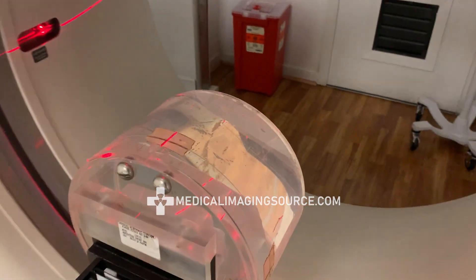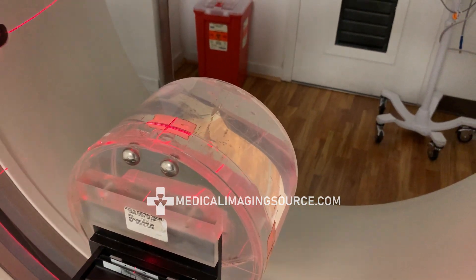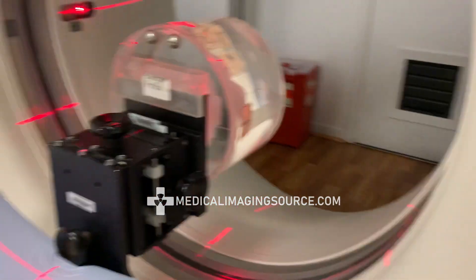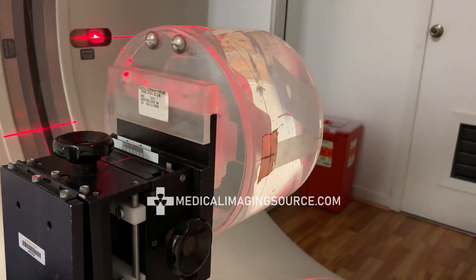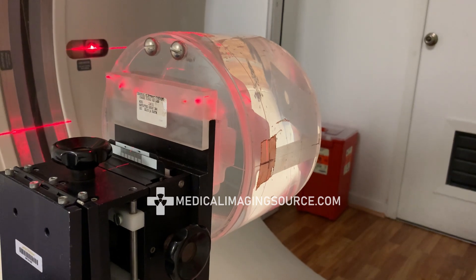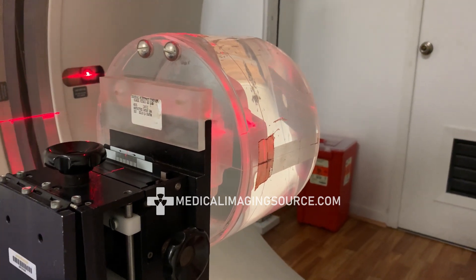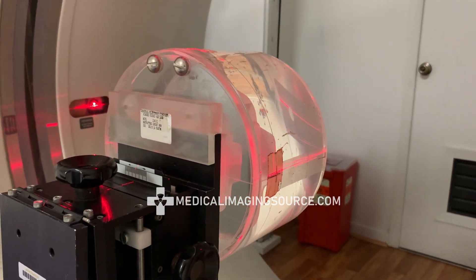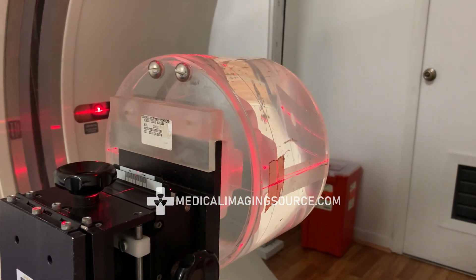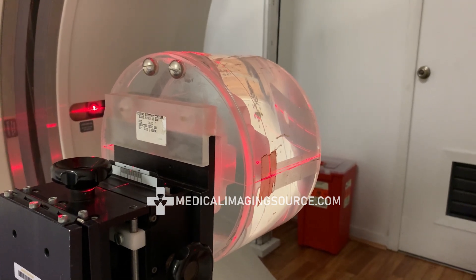So let's go in and landmark there. It looks like we're still a bit low, so we'll bring it up and make sure we have the appropriate landmark there.